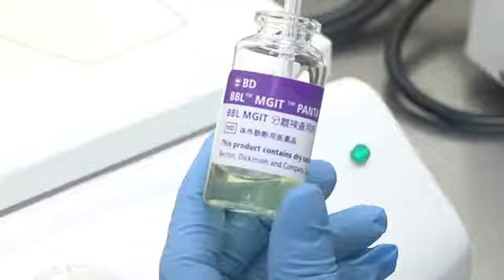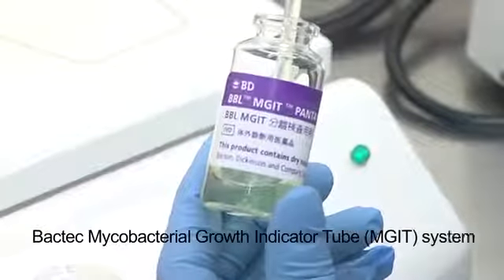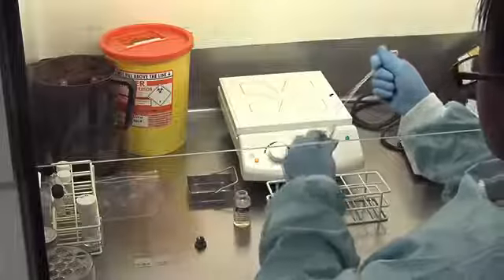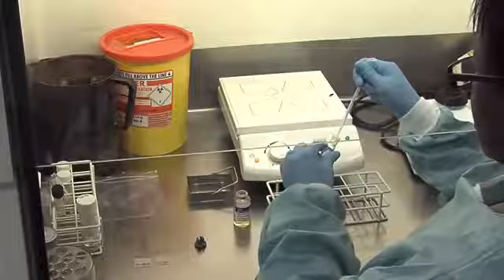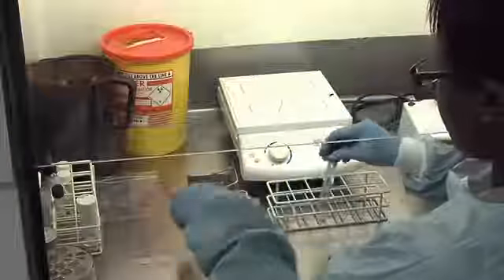The liquid culture media is a commercial-based system for mycobacterial culture. It is known as the BACTEC Mycobacterial Growth Indicator Tube System, with the acronym MGIT or MIDGET. The MIDGET tube contains a modified Middlebrook culture broth and an antibiotic supplement.